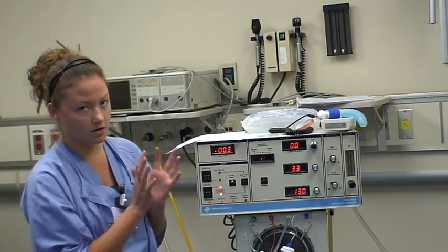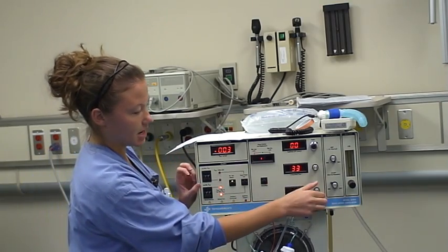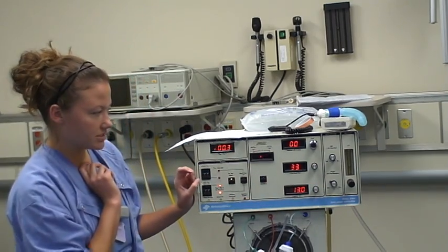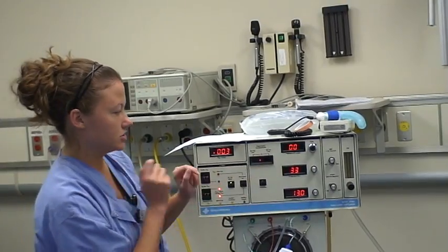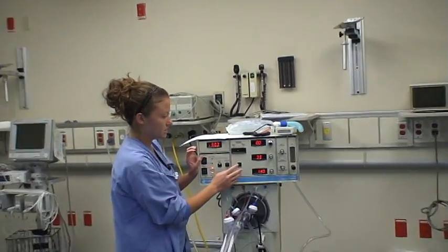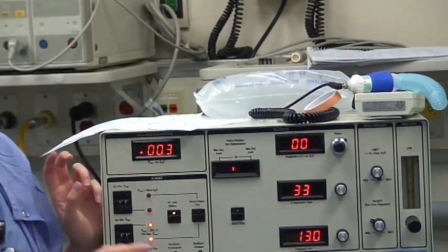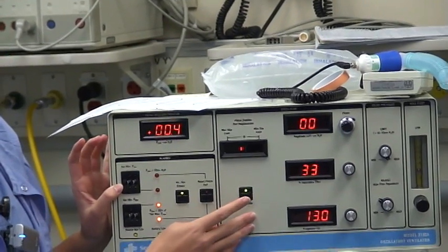You adjust the frequency using that knob. The next thing you're going to set is your amplitude, which is located up here. It's easier to set the amplitude when you start the ventilator.